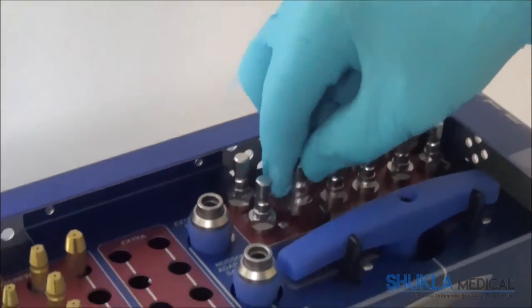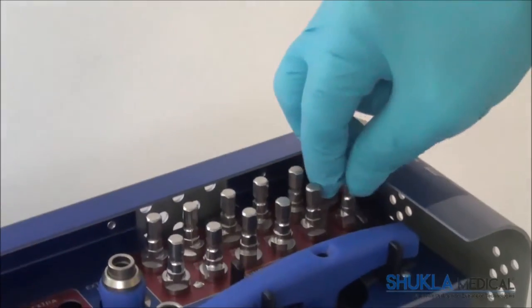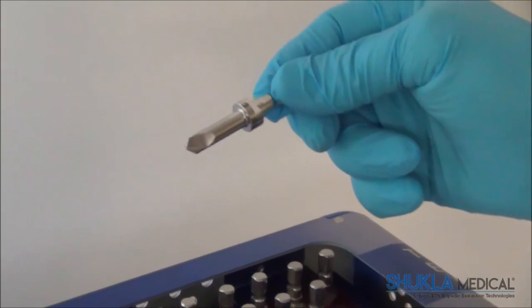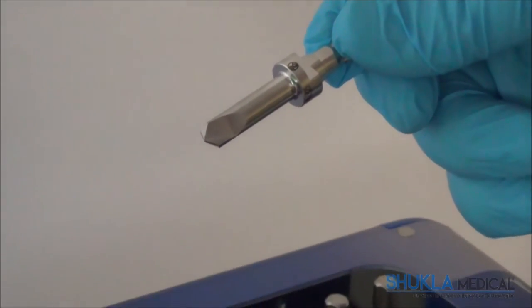Seated behind the T-Handle are two of each drill bits, ranging from 2mm to 7mm. These bits may be used for several reasons. One, to remove the head off of a stripped screw so that the screw may be removed as if it was broken.